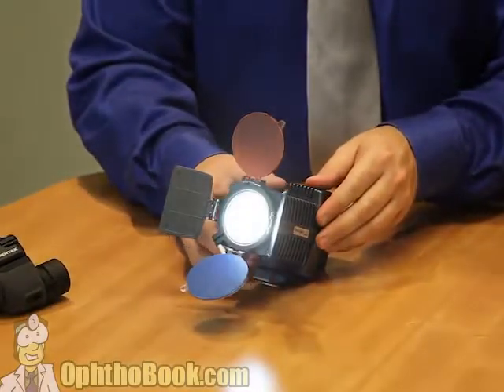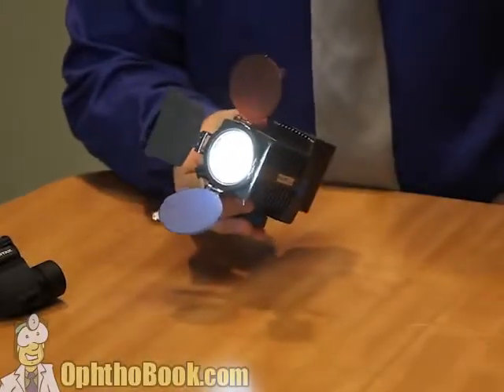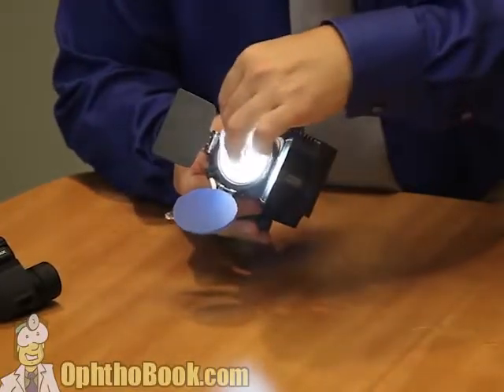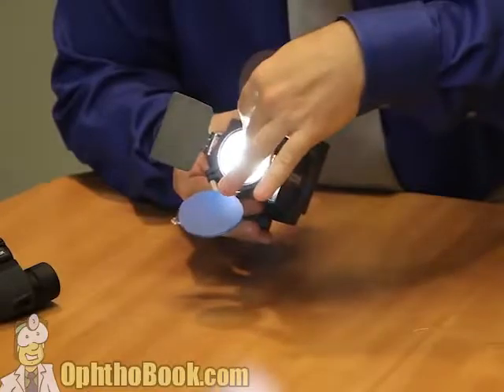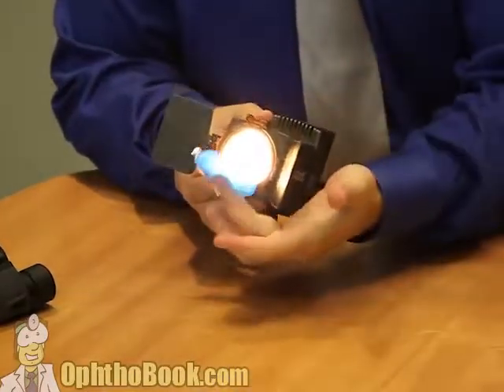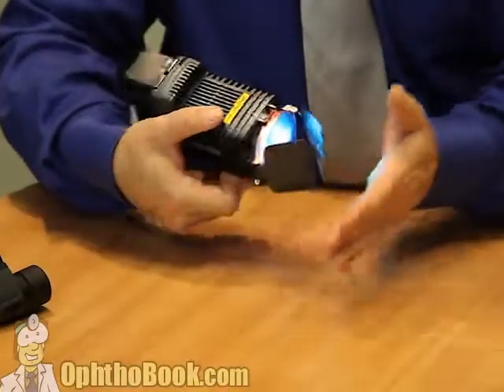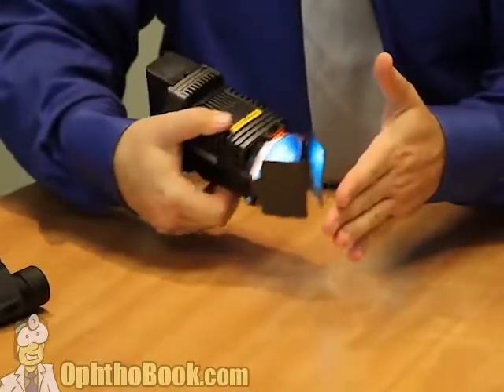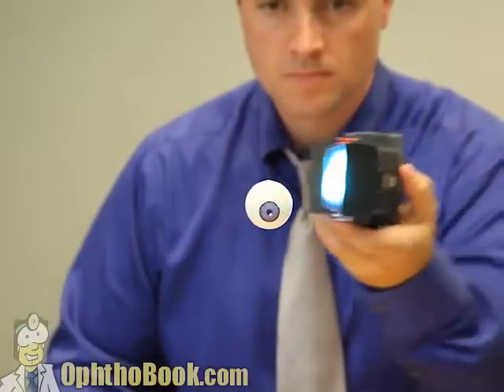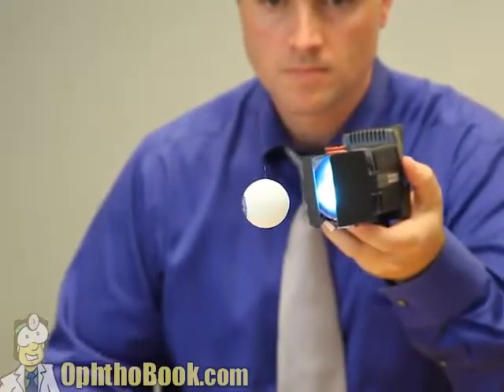What if we improve our light — put it in some type of housing so that it's very bright? In fact we can even focus our light using a lens in the front, add some filters onto the light in order to look at different structures in the eye, and we can even put barn doors so we can create a slit of light, a beam of light. This is a better way to look at the eye, and now we have basically an excellent light source.